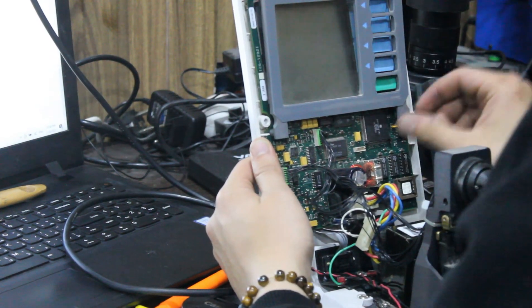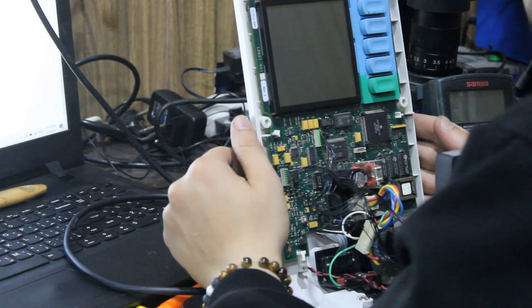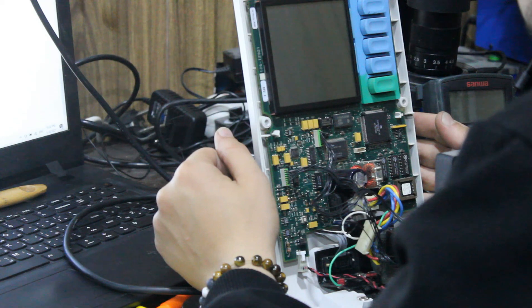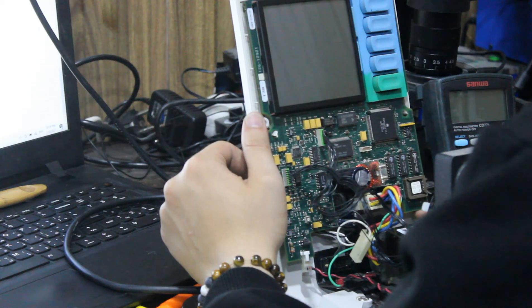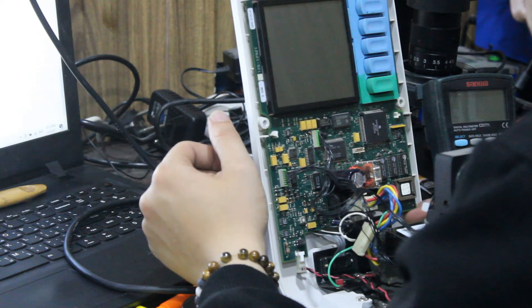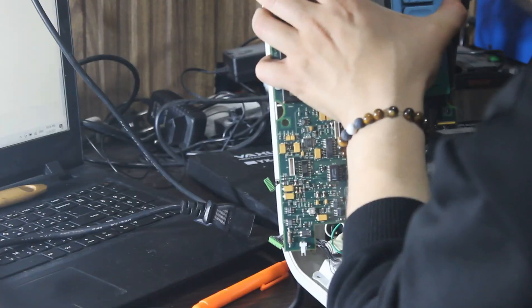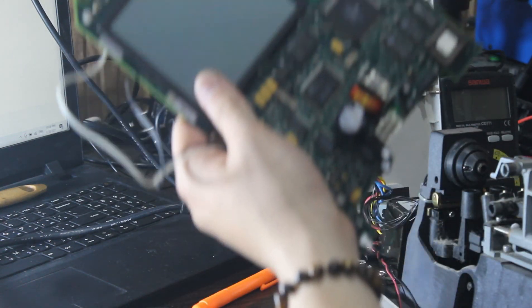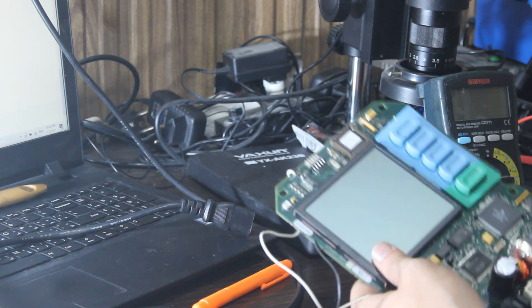We need to check if there is anything obvious, something damaged. Maybe there is a short circuit here — so we need to remove the board, which is the connection. And that's the board. So dirty.